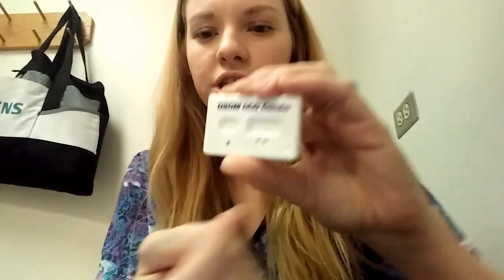So I want to read a little bit about how to actually perform the test. You're going to use the bulb — of course you'll have gloves on. Here's the little bulb and what you do is draw up the specimen to this little line here. I think it said it's about 135 microliters, so you really don't need much urine at all to run it.